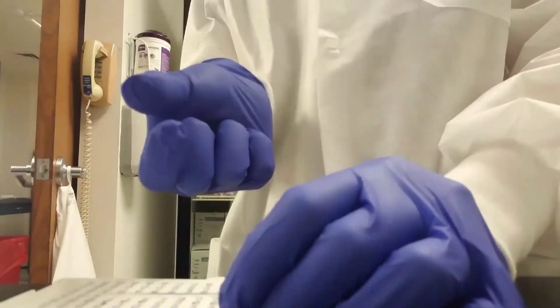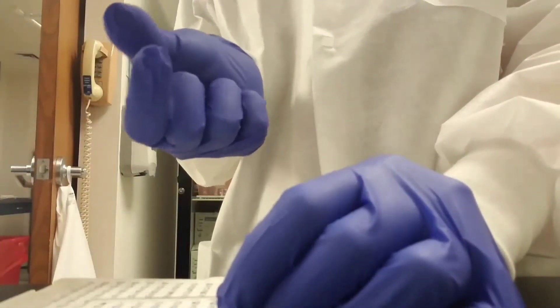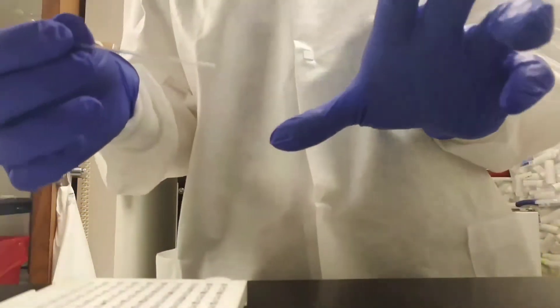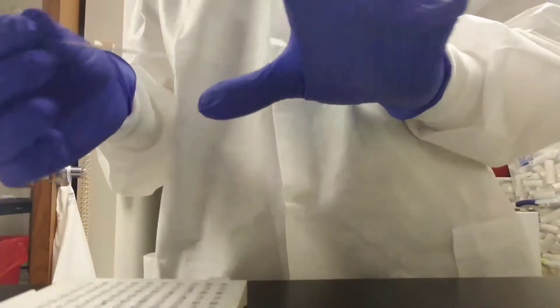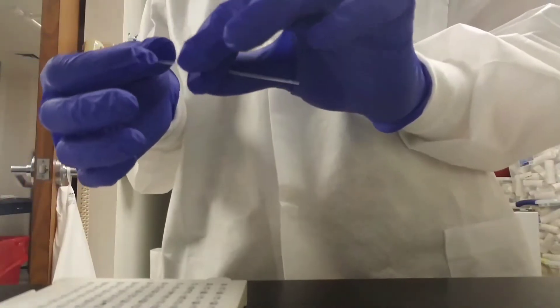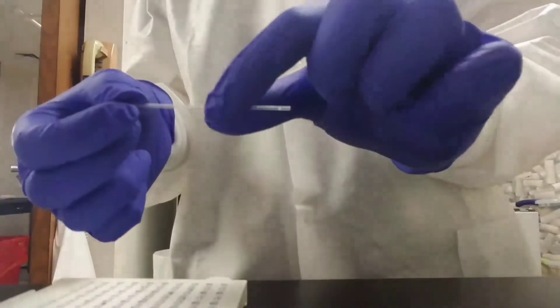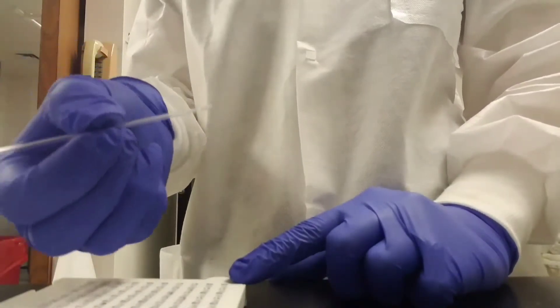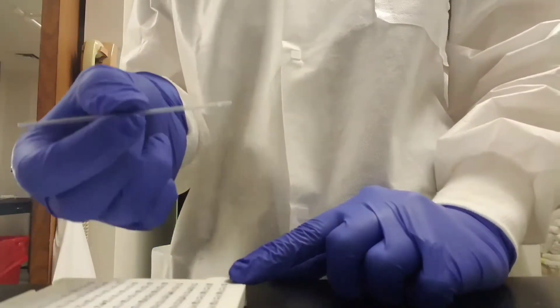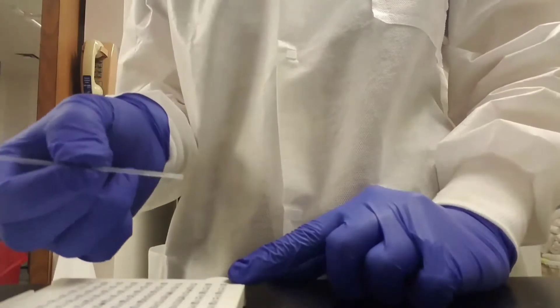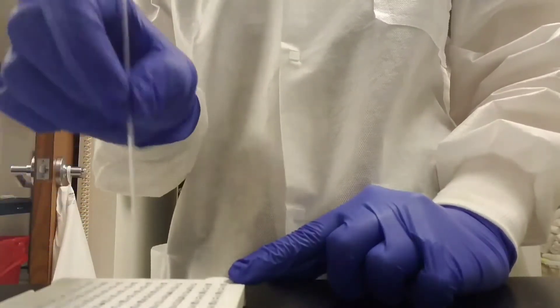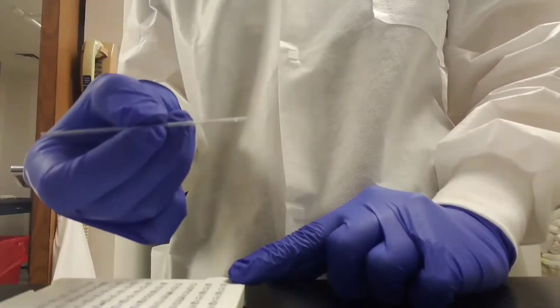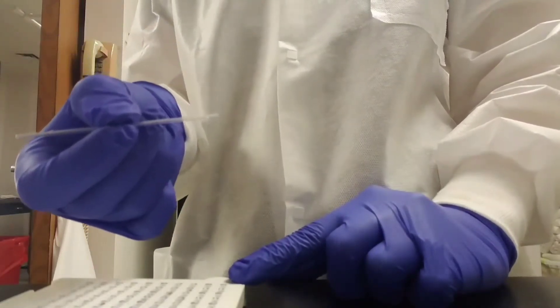What you want to do is tilt your tube of blood about horizontal and then add in your tubing, and then wipe it off with just some tissue. While you're keeping it level, pretty quickly you want to turn it over and then use the stopper. You have to do it pretty fast before the blood comes out. And also, you don't want to do it too fast and apply too much pressure because you can snap this tube in half.